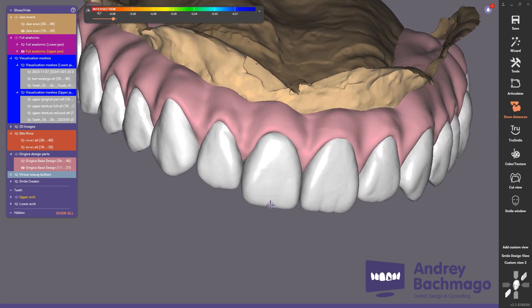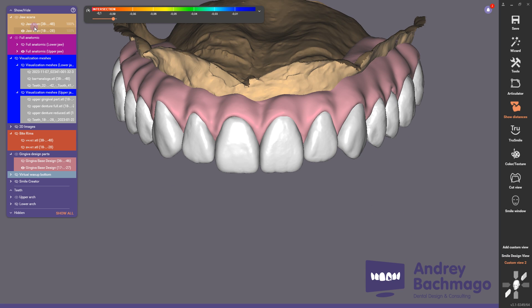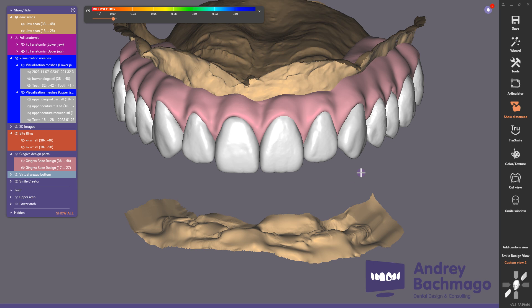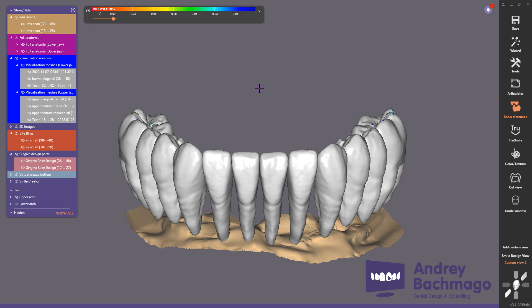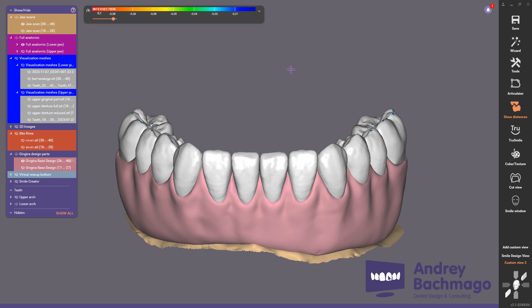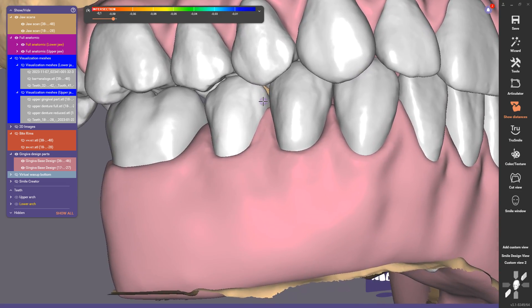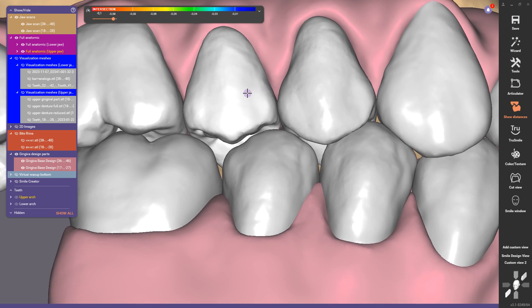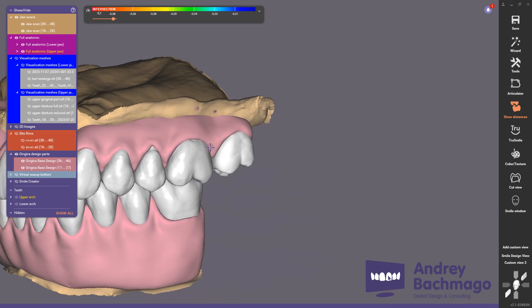For the upper jaw, for smooth movements I use a 3D Connexion SpaceMouse. Next we need to prepare the new bridge on the lower jaw. I always use libraries with roots — this is very important when working with FP3 constructions. The design is prepared in first-class occlusion with static contact points and dynamic movements, then I prepare the other side.